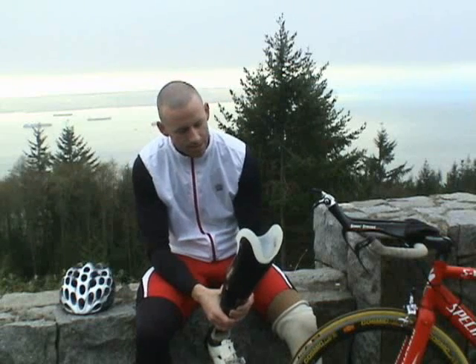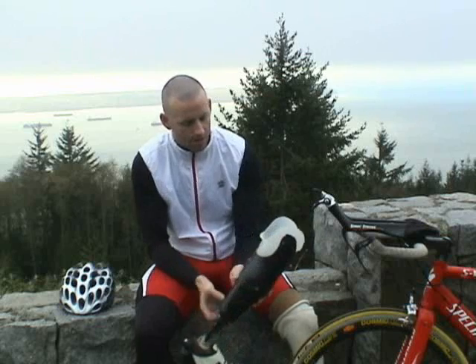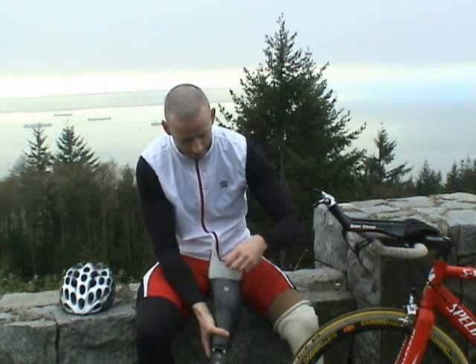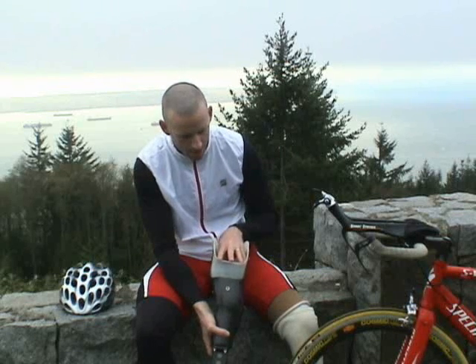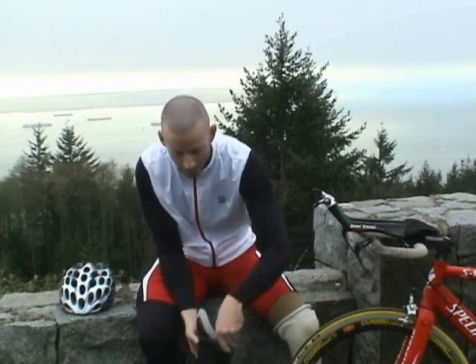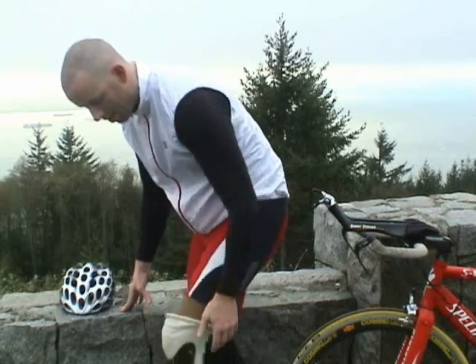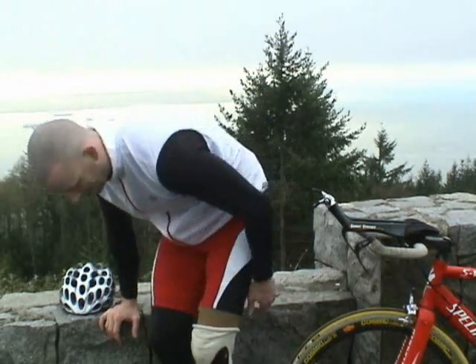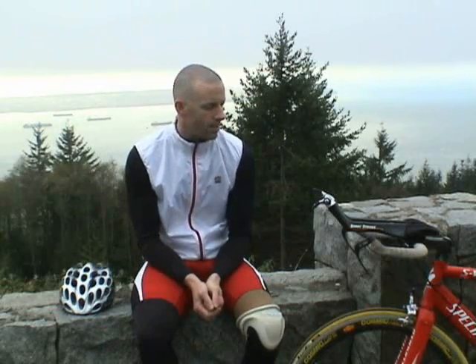Another interesting adaptation that my prosthetist made, because I ride my bike so often, is that he rolled the back part of my prosthesis lower than it would normally be if I only used it for walking. That was to allow my pedal stroke to go more smoothly, so as I get to this point of the pedal stroke it doesn't bind. That makes it far more comfortable, and I can ride longer and more effectively because he did that.